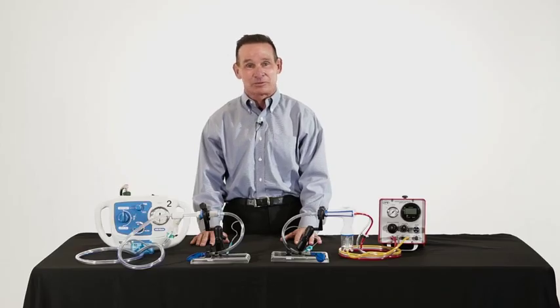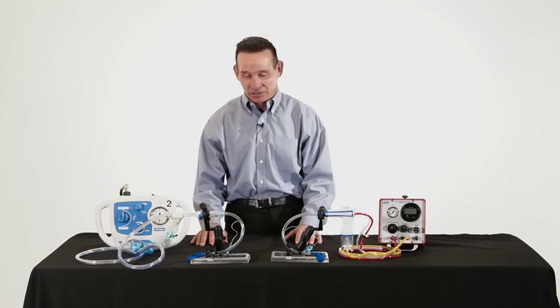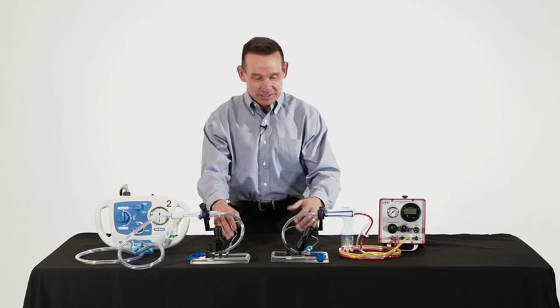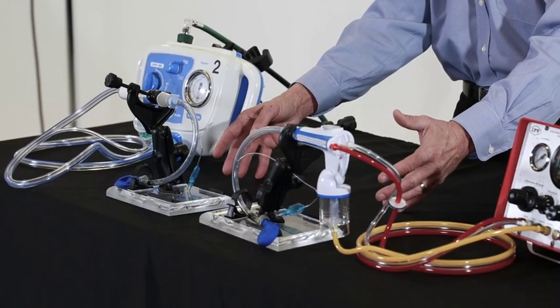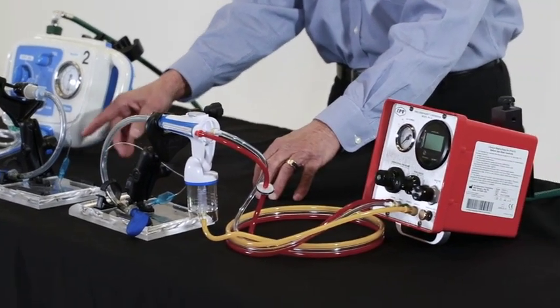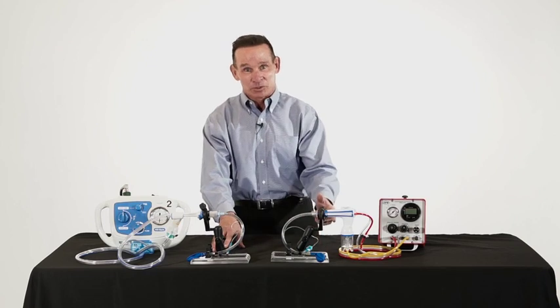For our second demonstration, we're now going to look at the airway movement characteristics of each device. What we have here is a simulation of an ET tube connected to a lung, and as you can see, we have a balloon on the end. In each of the balloons is 10 cc's of a viscous solution that very much mimics sputum. We're going to look at how well each device is able to migrate the sputum out of the balloon up through the tube.